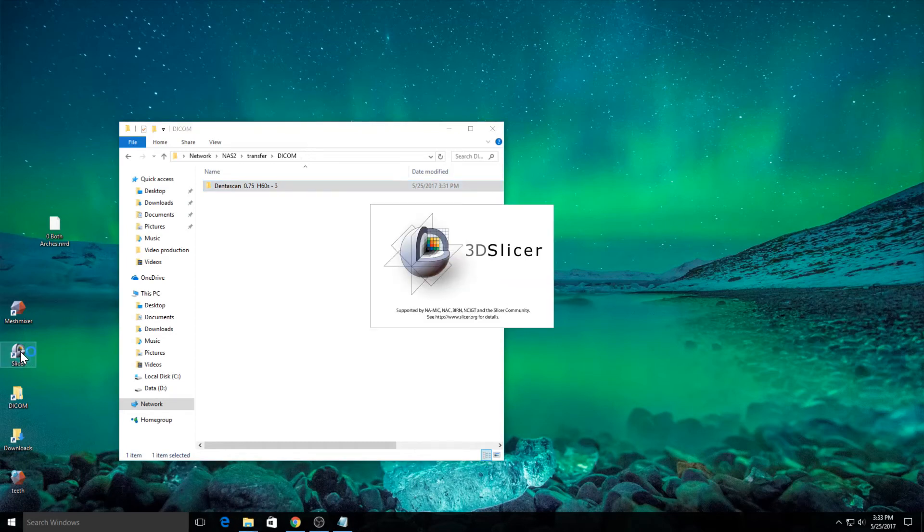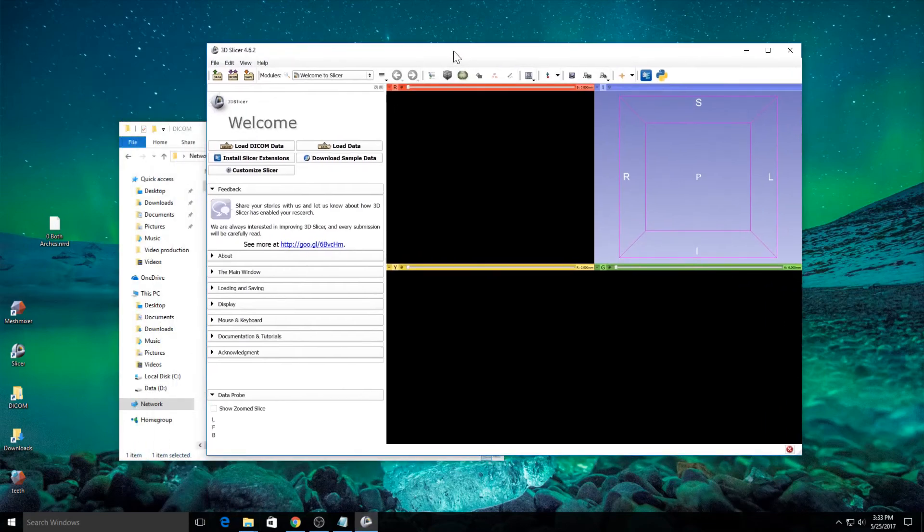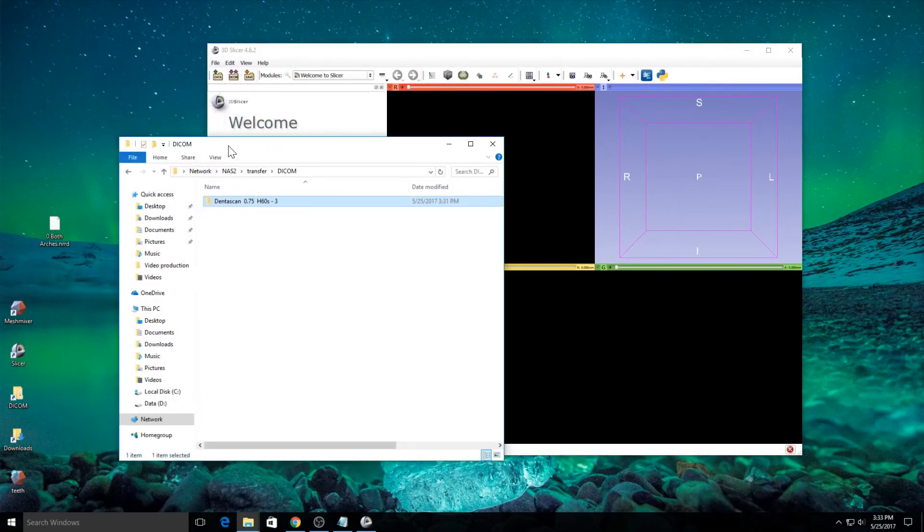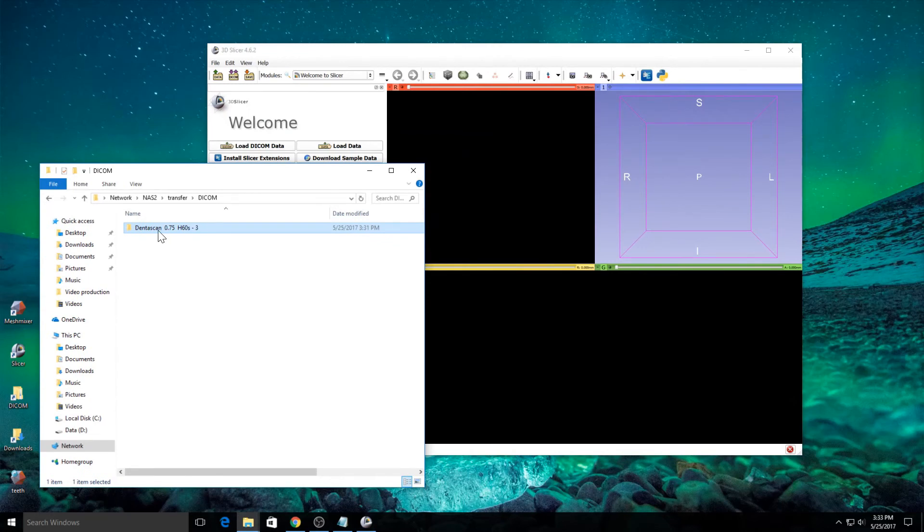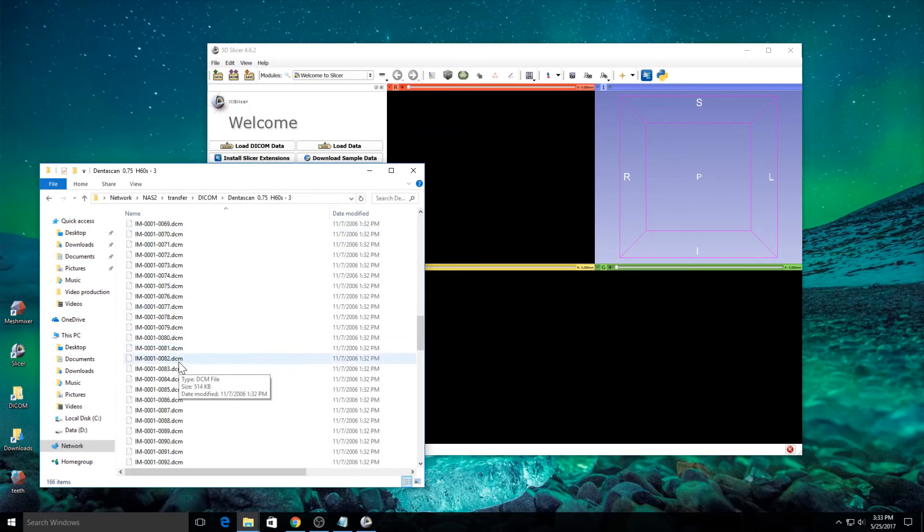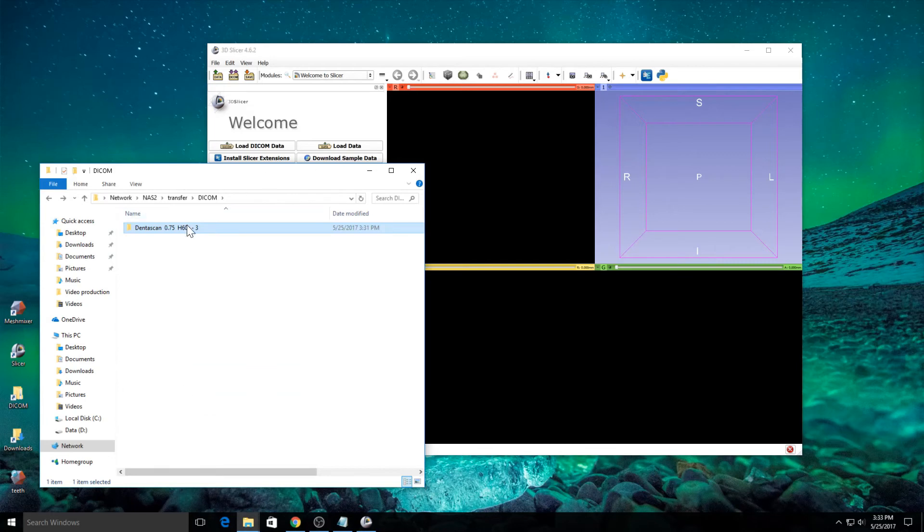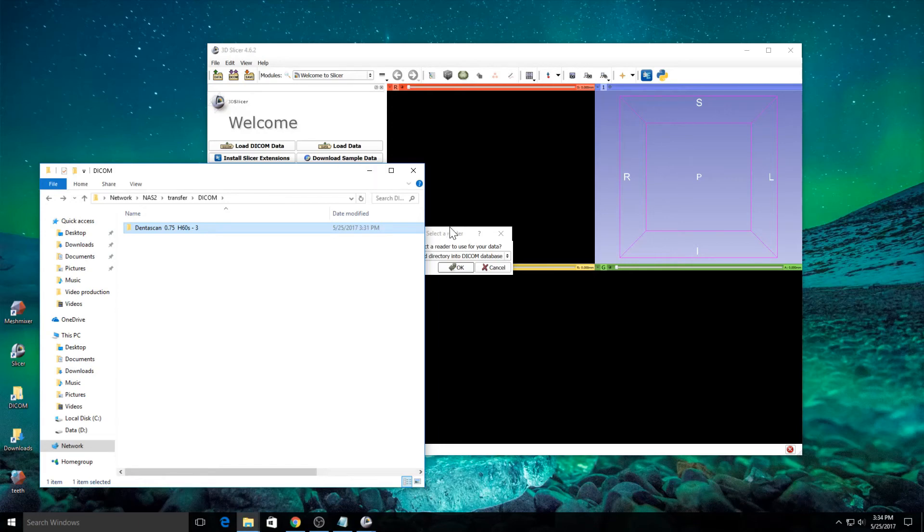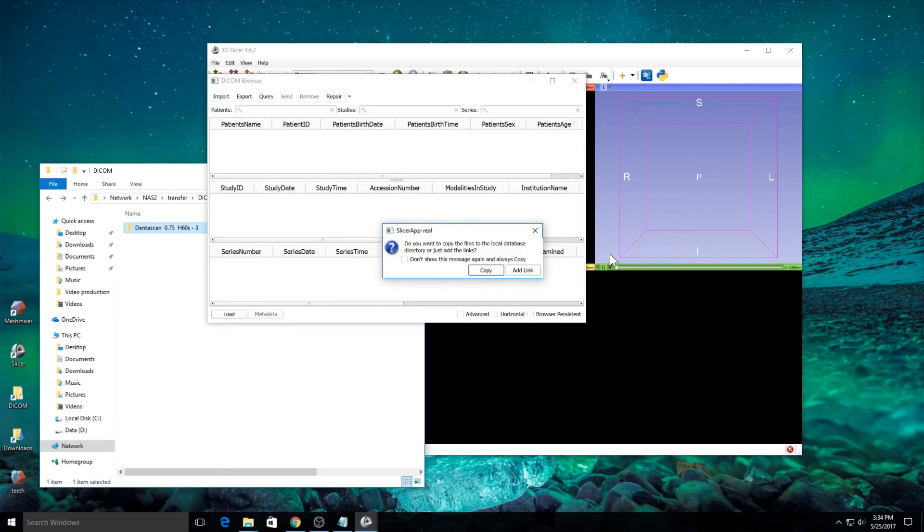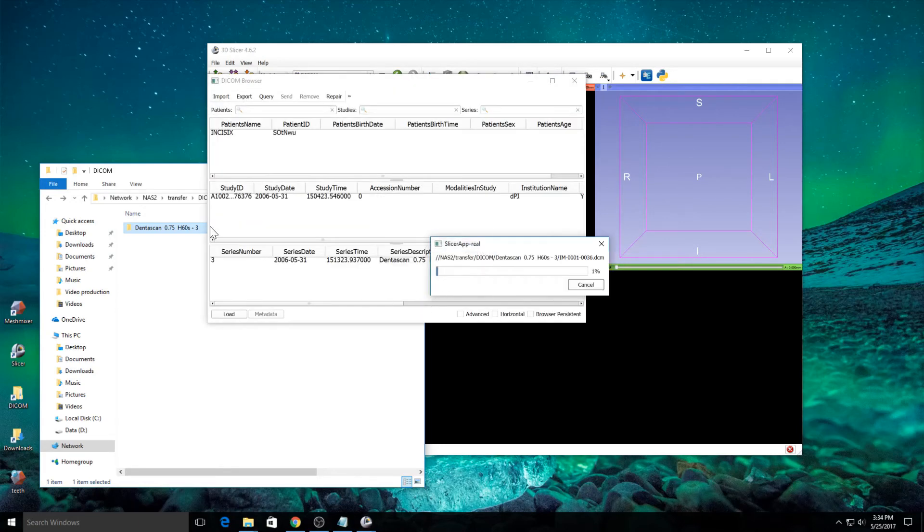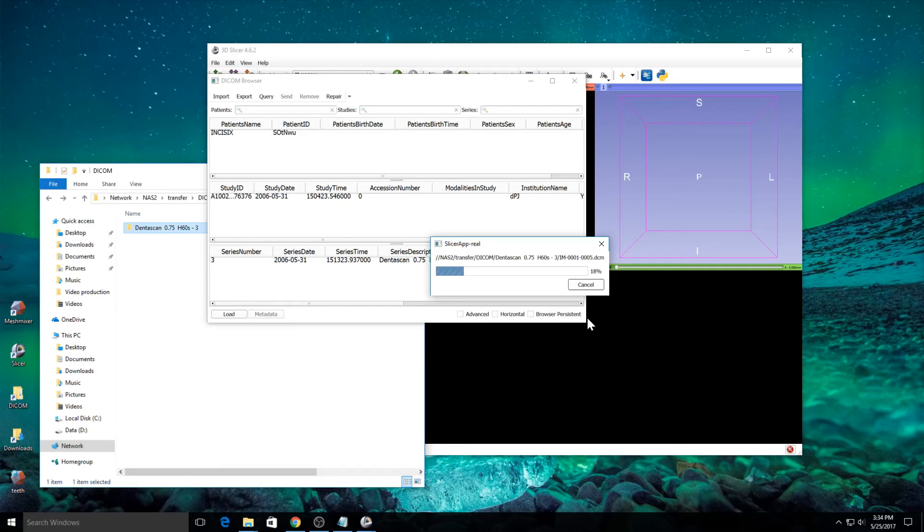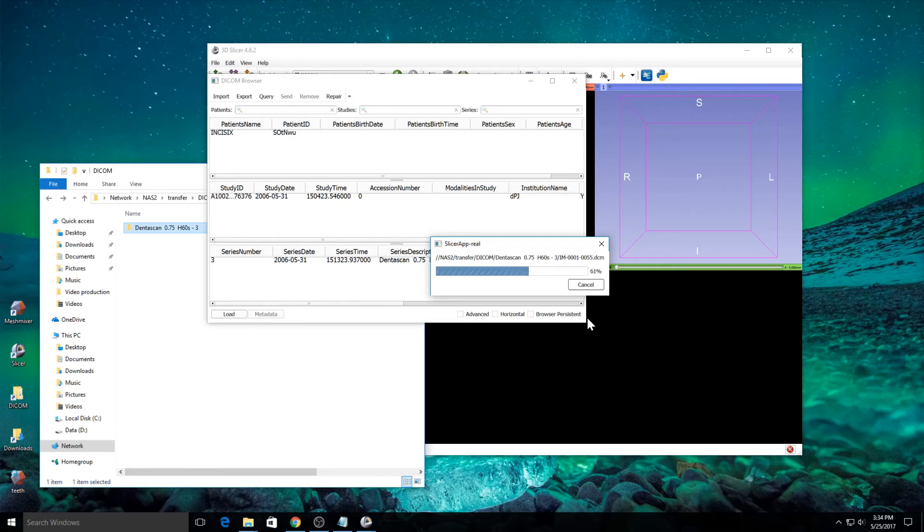You can do that through Slicer. Go ahead and open Slicer and take the DICOM folder. In this case, here's a dental CT scan and it's made up of all these different DICOM files. I'm going to take the whole folder and drag and drop it onto Slicer. Slicer is going to ask me if I want to load it into the DICOM database. And I'll just say OK and copy. And what will happen is Slicer will begin to work and copy over the individual DICOM files into the database. And then organize everything in a way that I can browse it and export it. And what I'm going to do is, after it's loaded into Slicer, I'm simply going to save it as an NRRD file. This process takes only about a minute or so. So it's a very easy way to convert DICOM to NRRD.